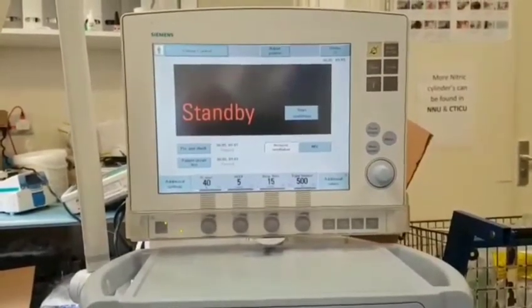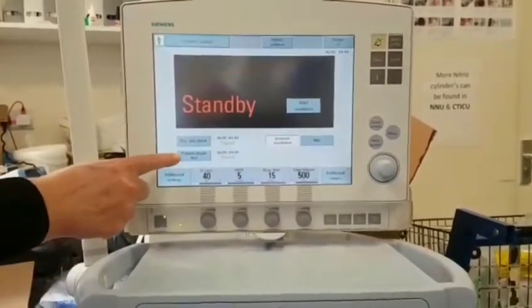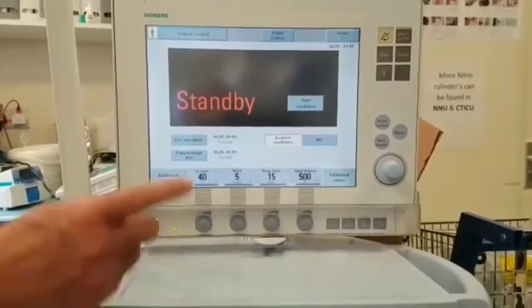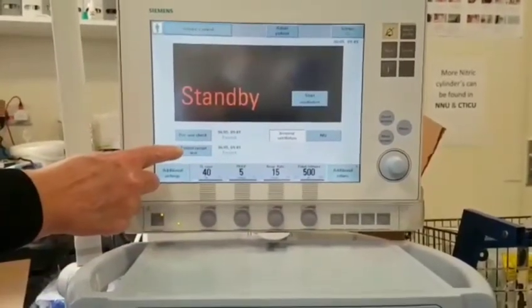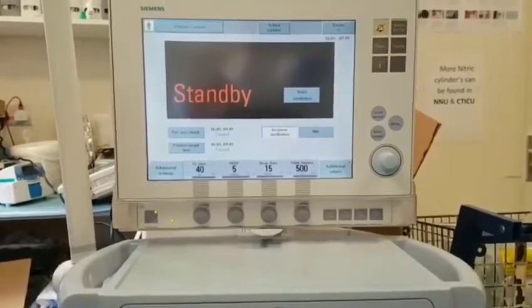If you change the circuit on the patient after seven days, or whenever, you can just perform the patient circuit test — if you haven't changed the expiratory cassette — just by hitting the patient circuit test button here. And as I said, nine times out of ten this ventilator is left in standby.